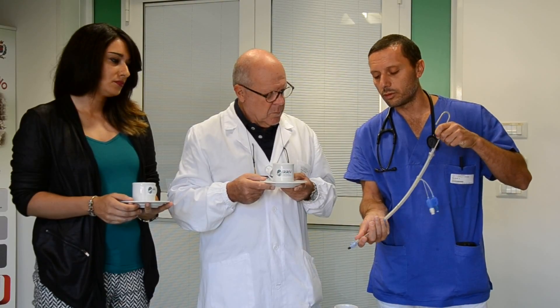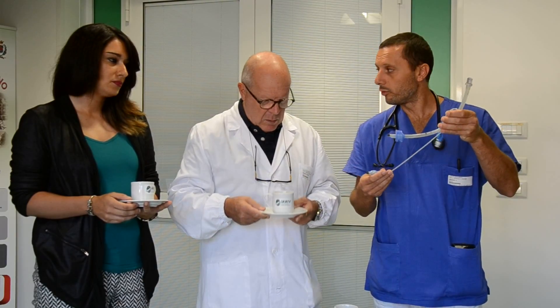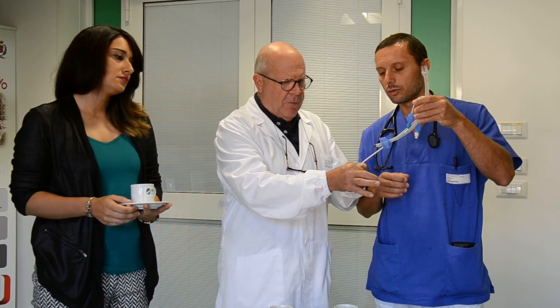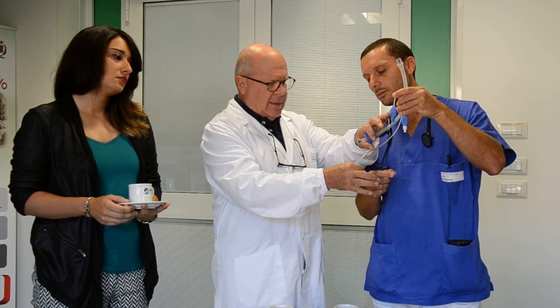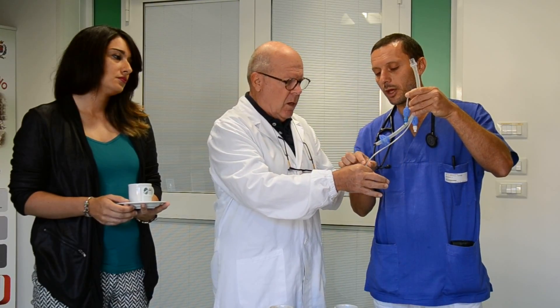Then you remove the spindle and the two cuffs are free to move. So basically the distal cuff is in the esophagus and closes it, the proximal cuff seals the pharynx, and the air goes not directly into the trachea as a tube but as airflow in the first step.